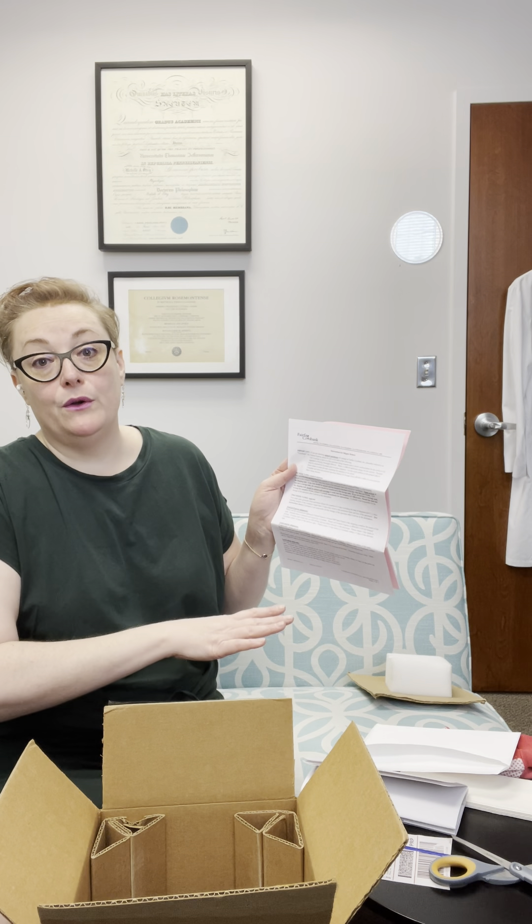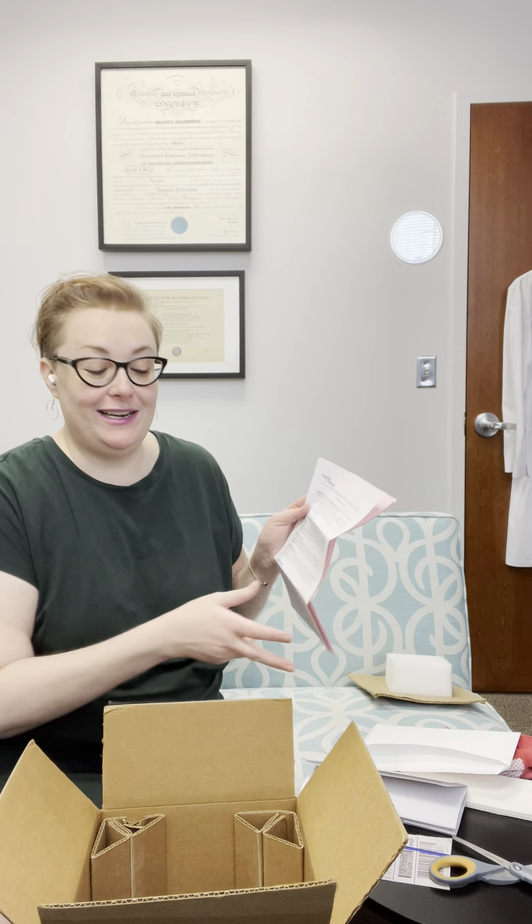Since you're doing the home insemination because this was shipped to your home, this instruction for identification, thawing, and specimen quality standard — you can read through it, but there is a specific instruction for home insemination. We also have all of the instructions for the ship or return. I recommend you go through all of that; you don't necessarily have to do it right at the beginning — you can do it when you're ready to ship it back.